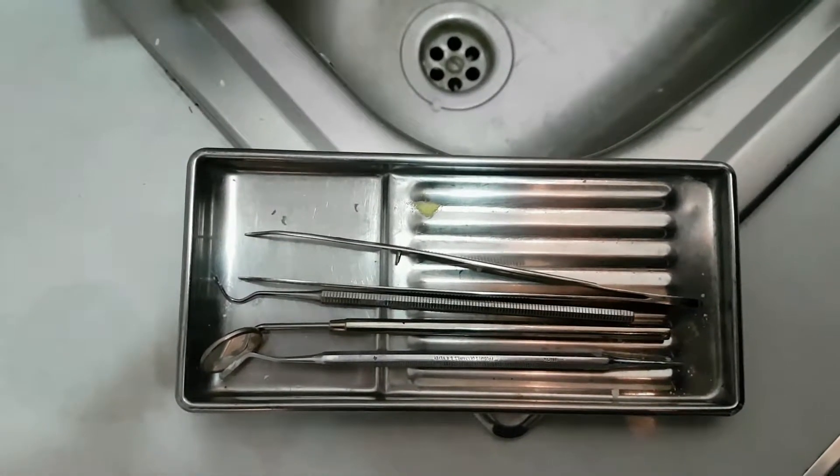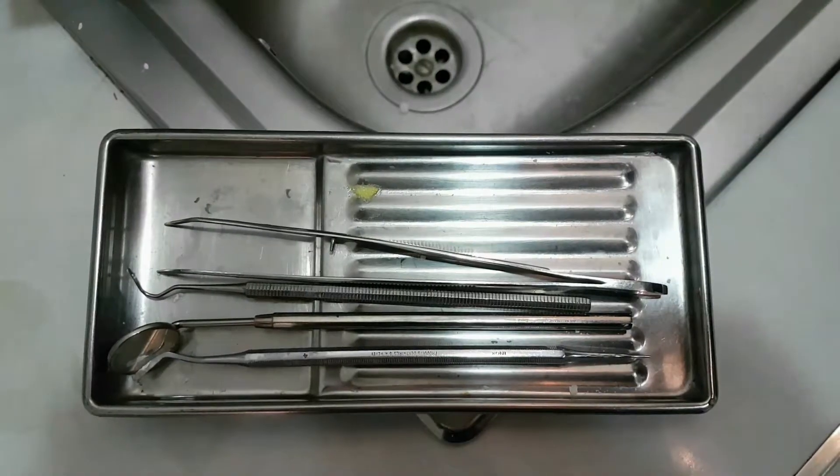Hello everyone! In this video we will show you how to properly wash up dental instruments.